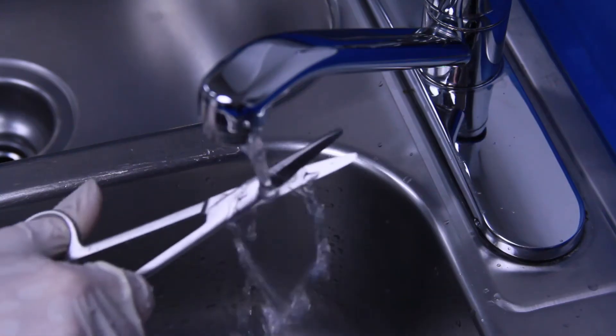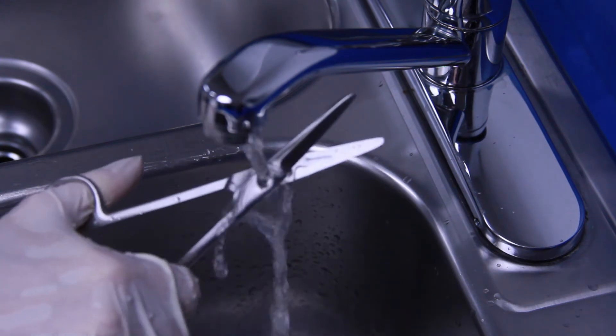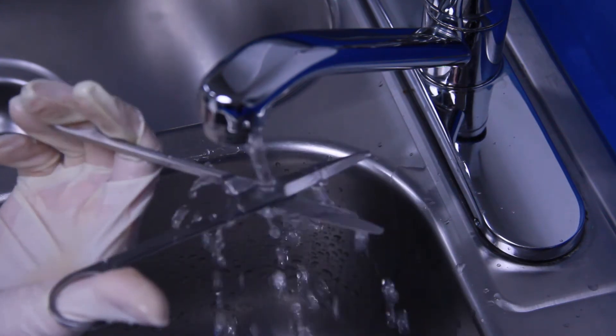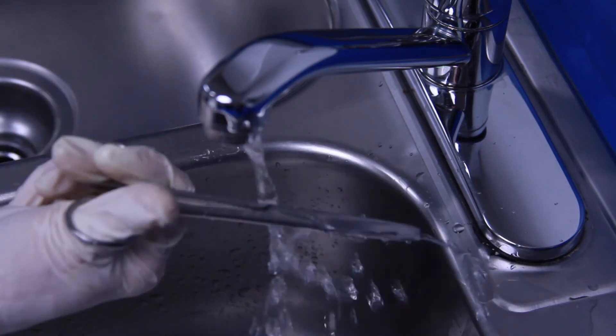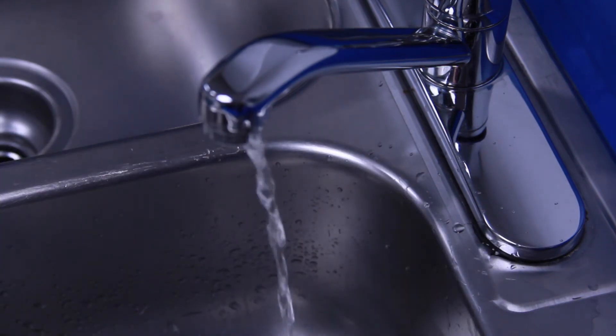Rinse each instrument thoroughly under running water. Open and close hinged instruments like scissors, hemostats, and needle holders under running water to thoroughly rinse detergent from the hinges.